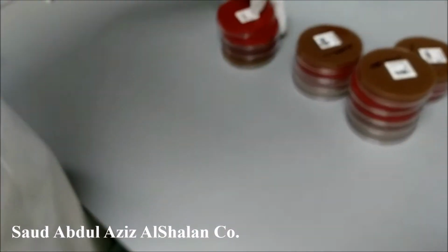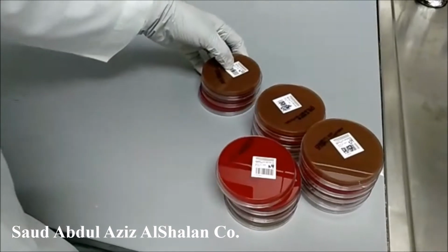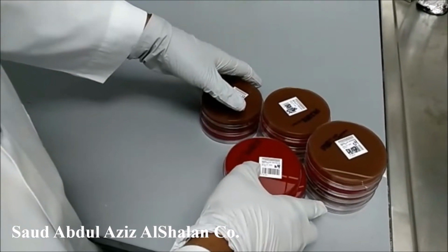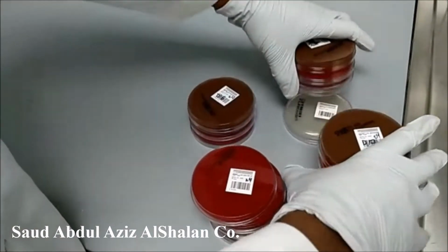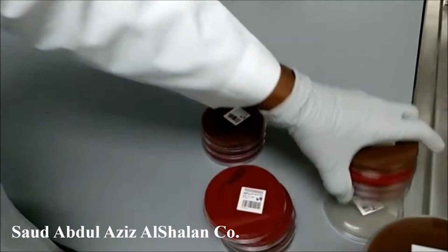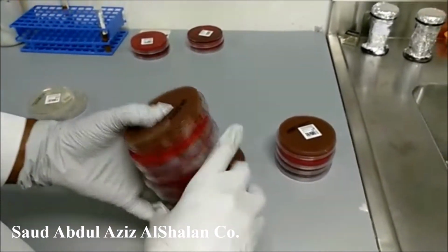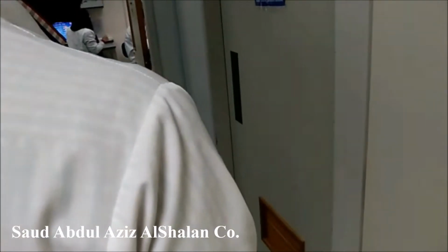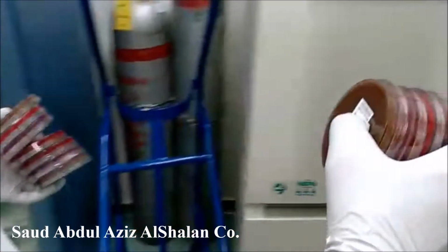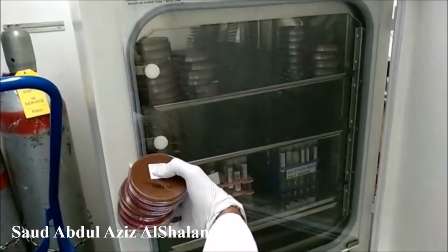For other types of specimen, blood, wound, and sputum, they are going to be incubated aerobically in the presence of CO2. For wound, except for the Sabouraud, it's going to be incubated in another incubator. Now we will take this to the incubator with the presence of CO2. This is the incubator, 37 degrees and 5% CO2.